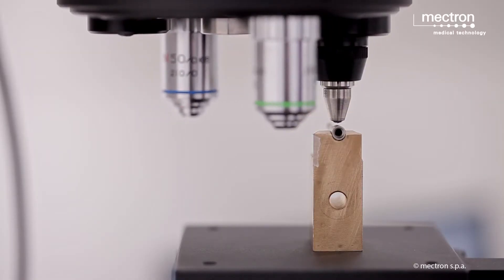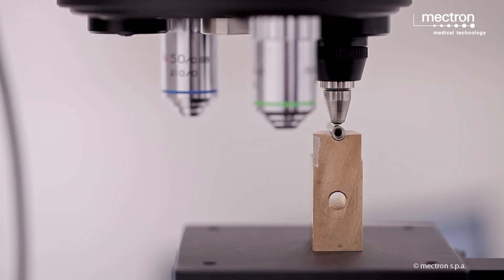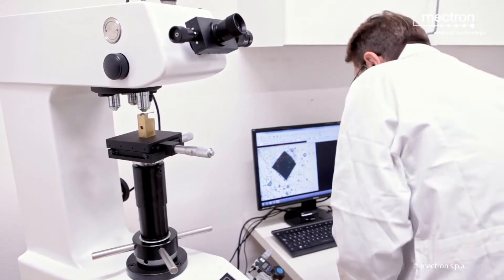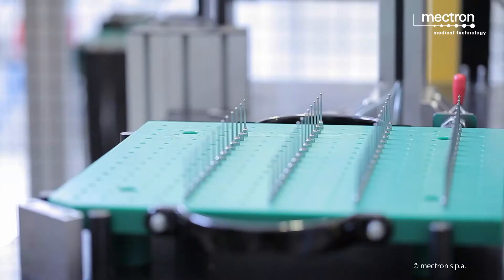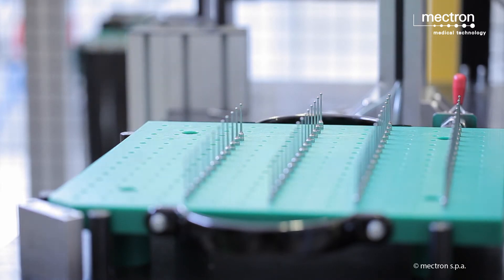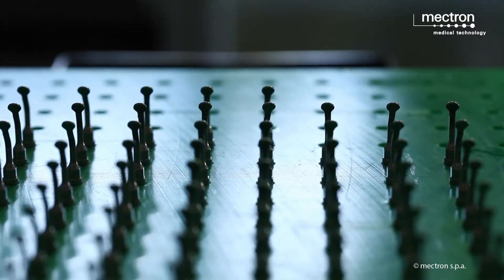Samples are analyzed to check whether the hardness obtained is within set parameters. If the hardness is too high, the inserts become brittle and may break. If the hardness is too low, the surface of the insert wears off quickly and the inserts quickly lose efficiency in use.